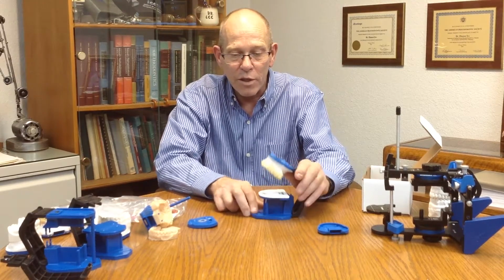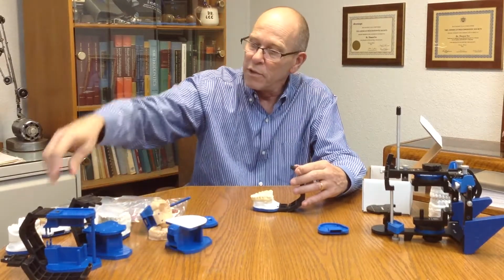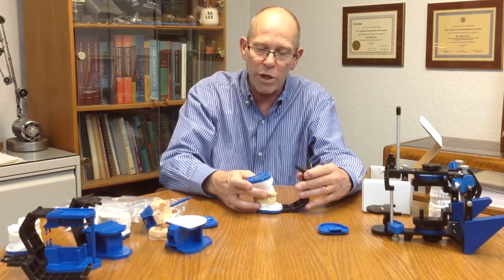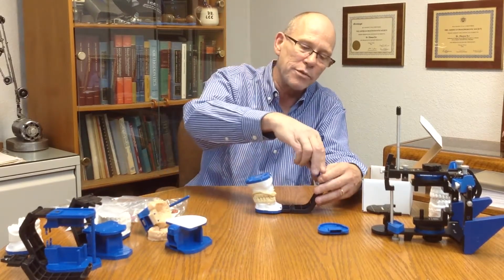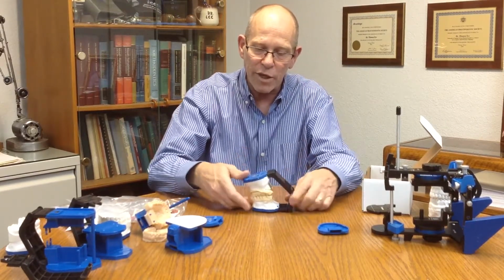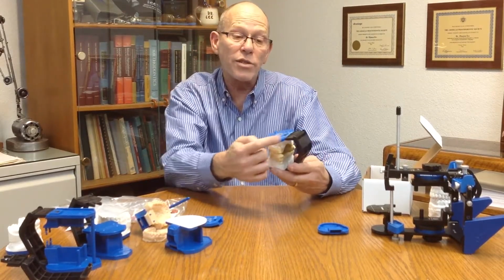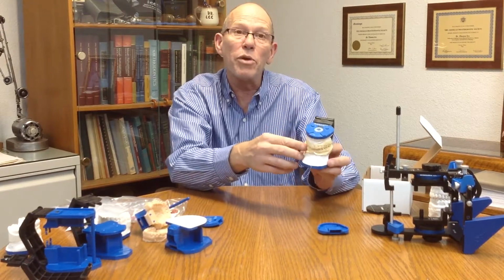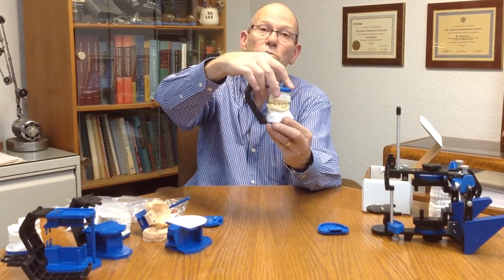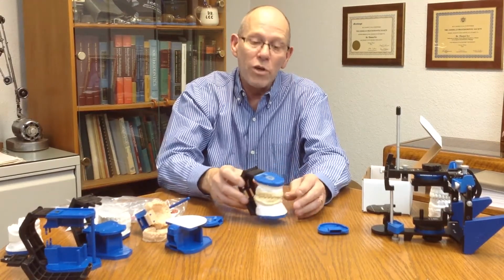And then of course we can remove the lower adapter here by pushing the button. You can add a model either with an interocclusal record or to MIP. We can again add a mounting plate and some plaster to the model, swing this around to make a connection of the models to have standard functionally mounted models to an axis of rotation for function to MIP for everyday dentistry, to create a better arc of rotation or opening and closing movement that should reduce adjustments in the mouth.